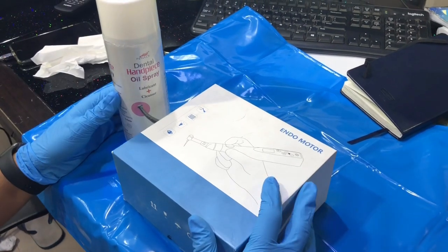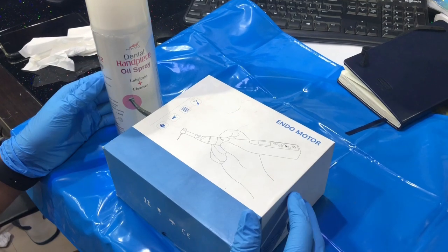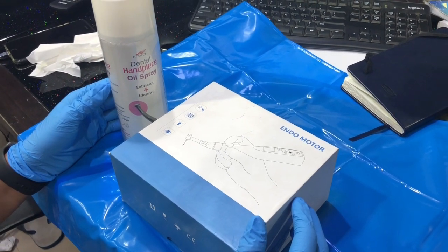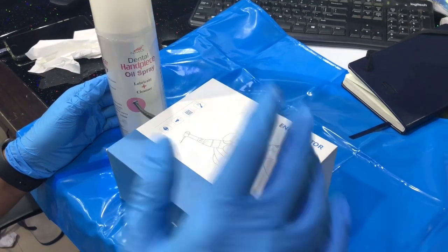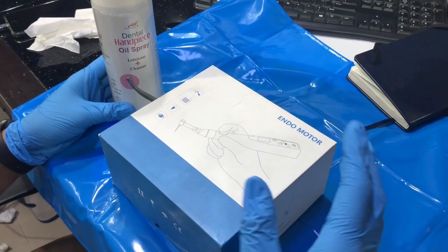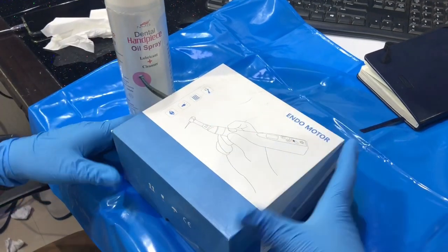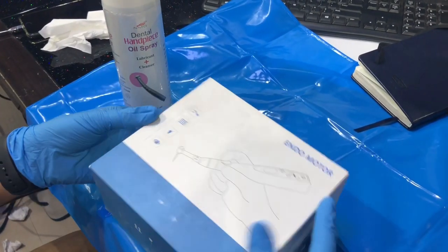Hello friends, good morning and we are back again today to show you how to lubricate the endomotor handpiece. Previously I've done a video for the cordless endomotor, which is a top-selling model, and I've got some inquiries about how to lubricate the handpiece, so I'm going to quickly show you how you can do the same.